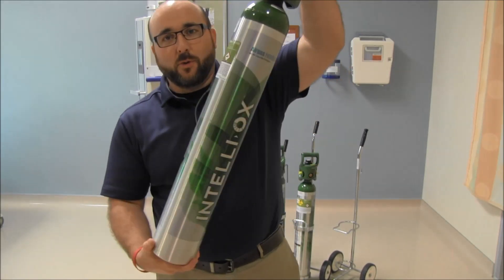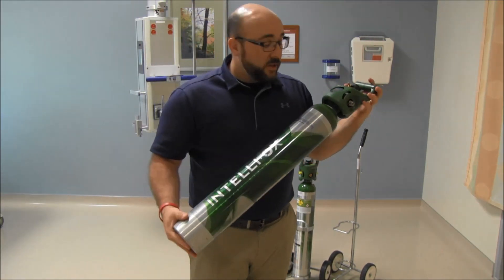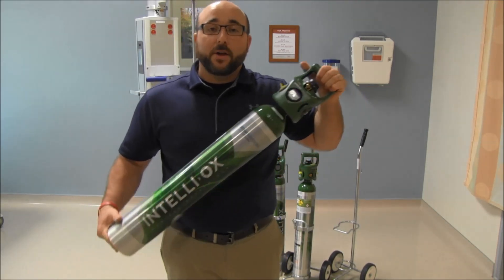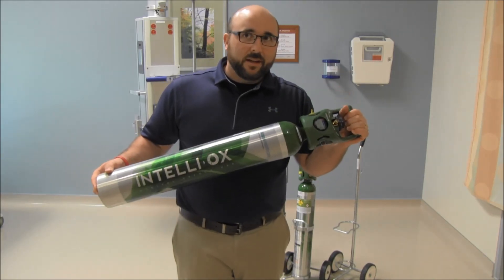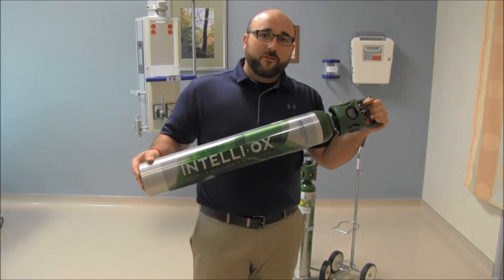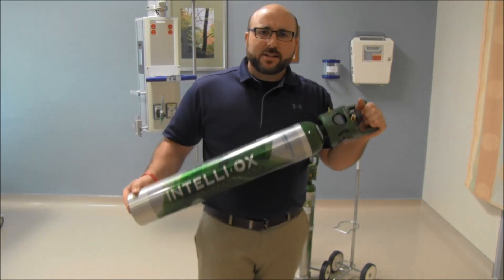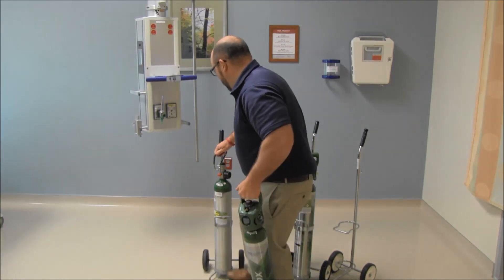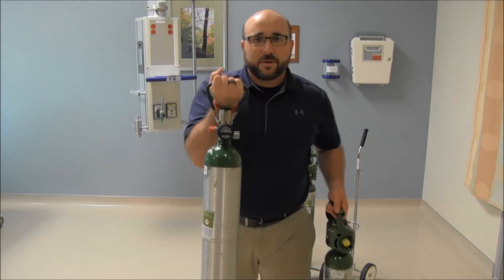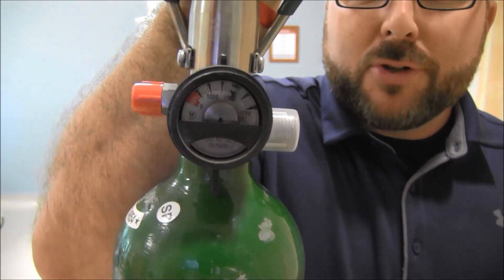IntelliOx has a nice wrap on the tank too. This is from Airgas Healthcare — that's who we're purchasing these from. We're going to go system-wide with this, and we're really excited about the patient safety aspect. There may even be a break-even on cost savings: you pay a little more for these tanks, but since we'll be using all or nearly all the oxygen out of them, it's a much better system — especially for staff who don't pick up an oxygen tank every day and know how to read a pressure manometer.